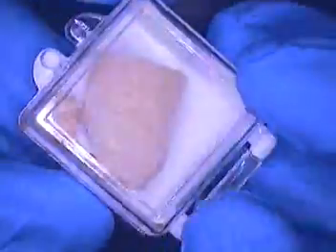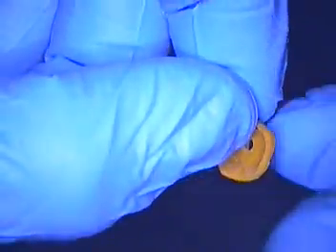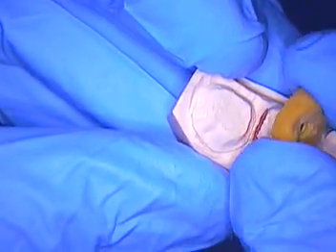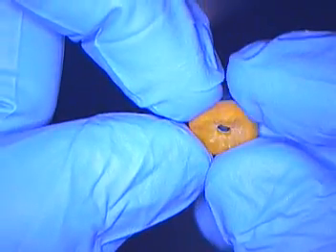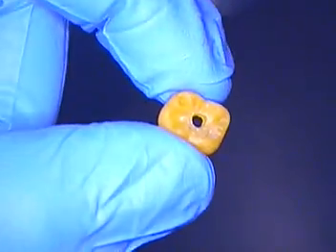Now I want to show you one more thing — another case I've been working on. It's called printing. These patterns are made in wax from a lab I use up in Massachusetts. A computer scans the die, and not only the die work but also the solid model and the working model. Once all this gets scanned, the computer uses the anatomy input and prints it. It's a process you should Google — printing in dentistry. It's actually a wax pattern made by a printing process. I'm not going to fully discuss it here; I'd rather you go ahead and Google the entire process.